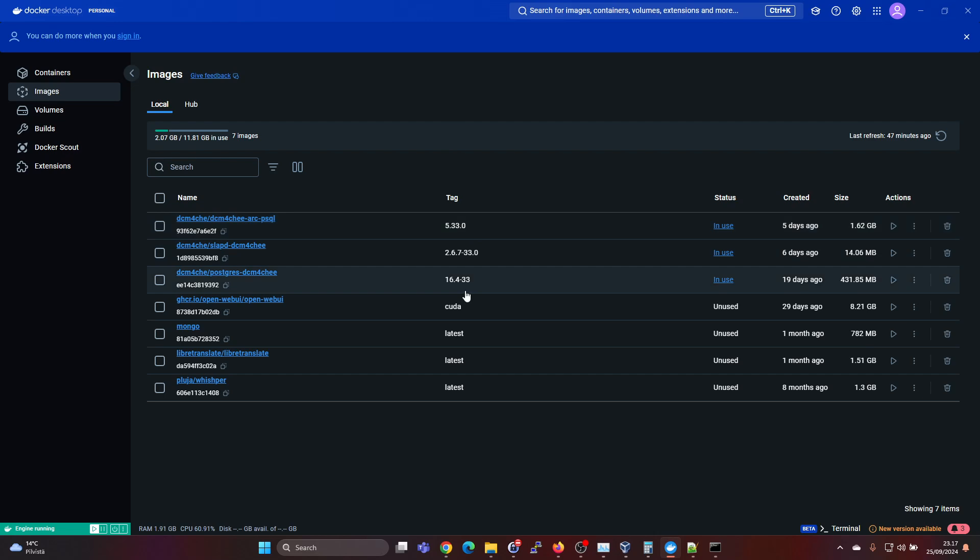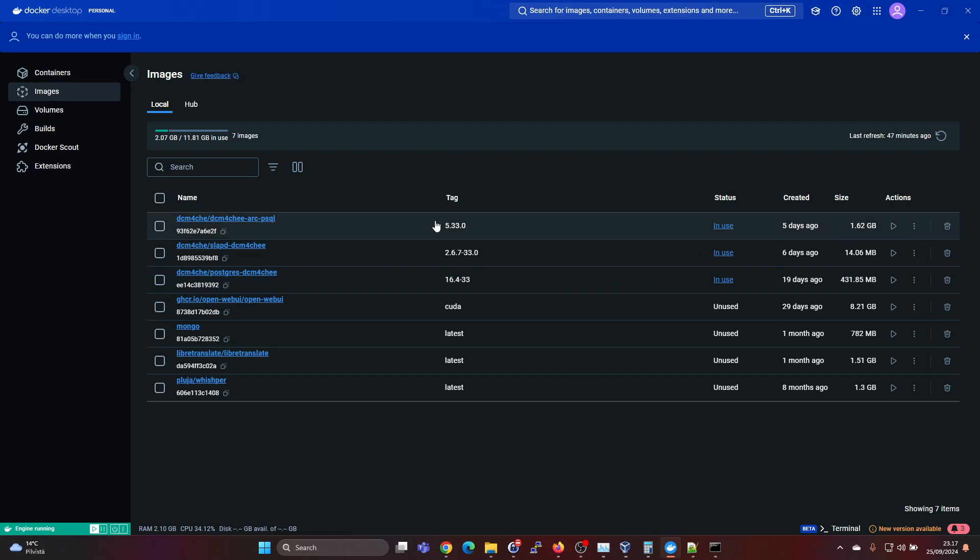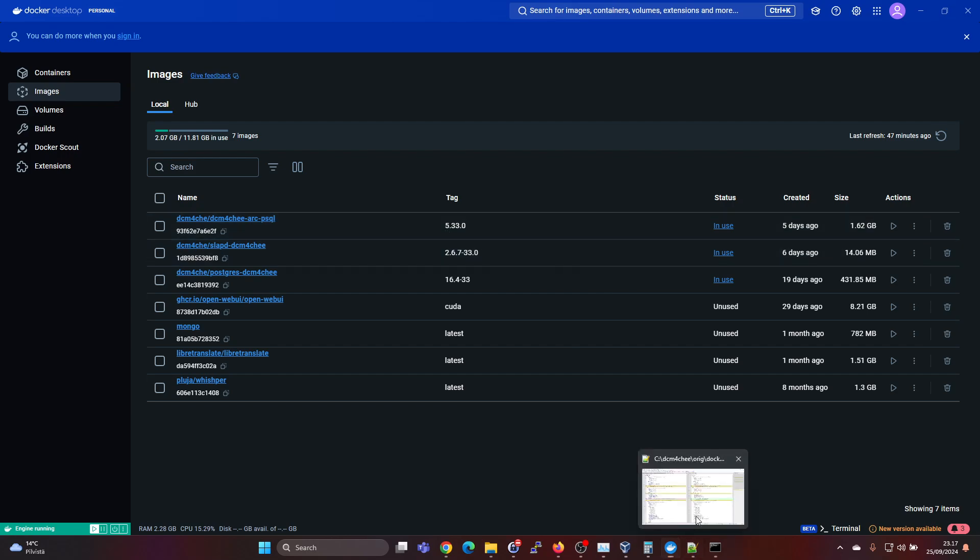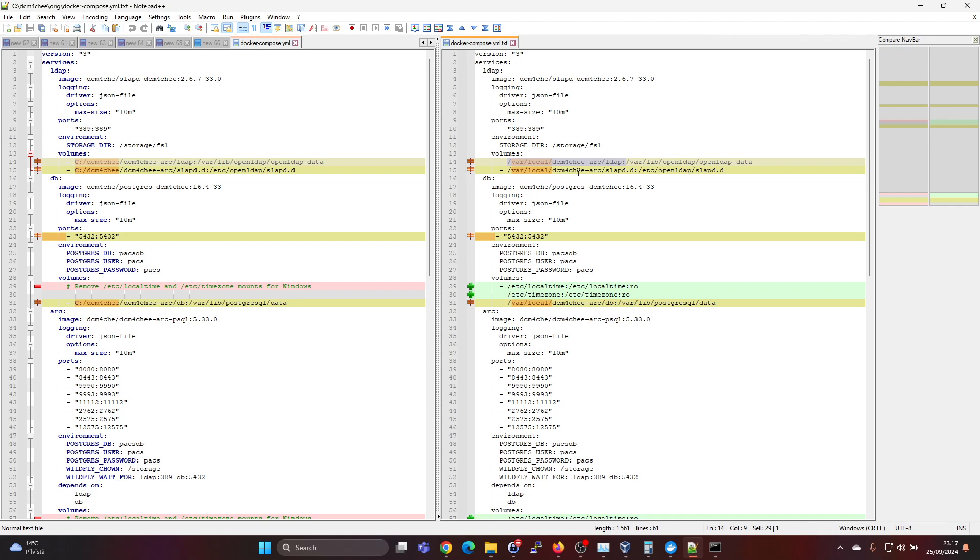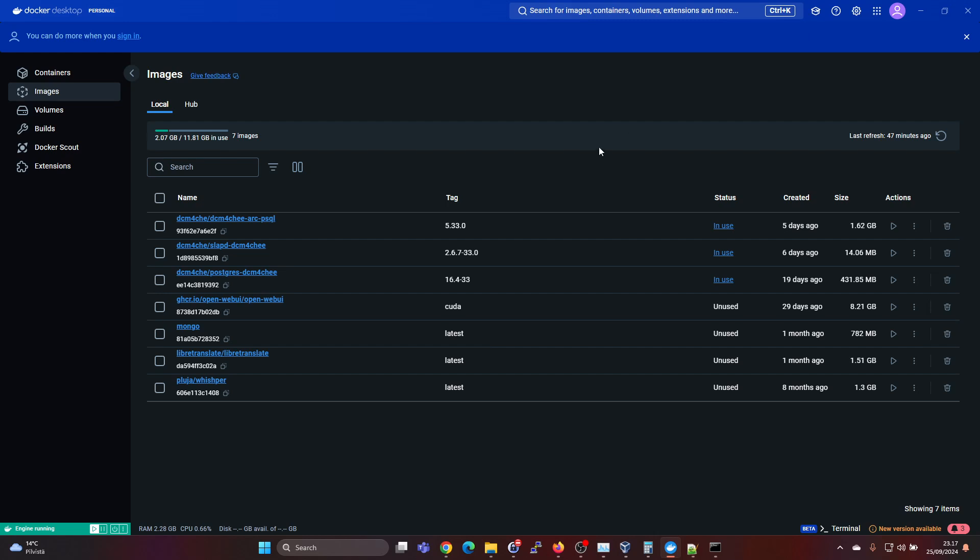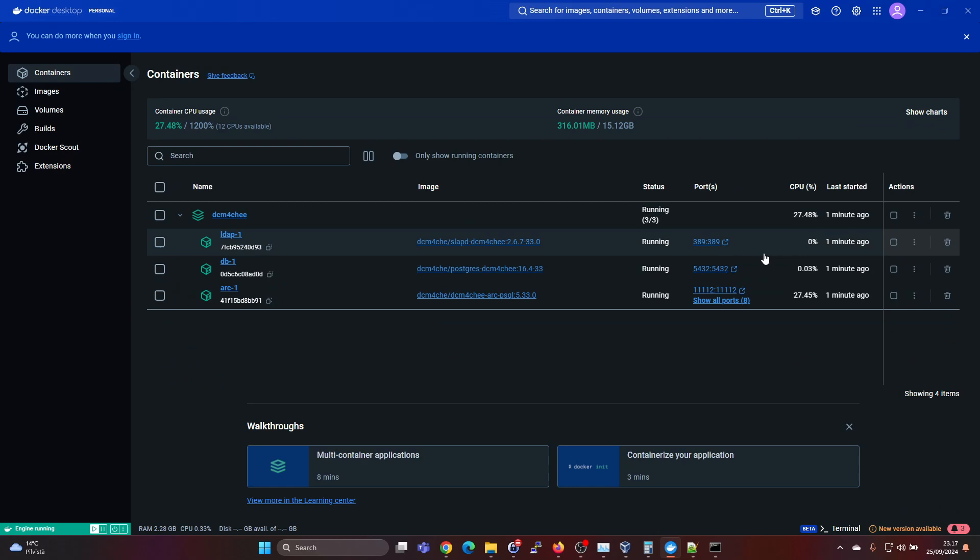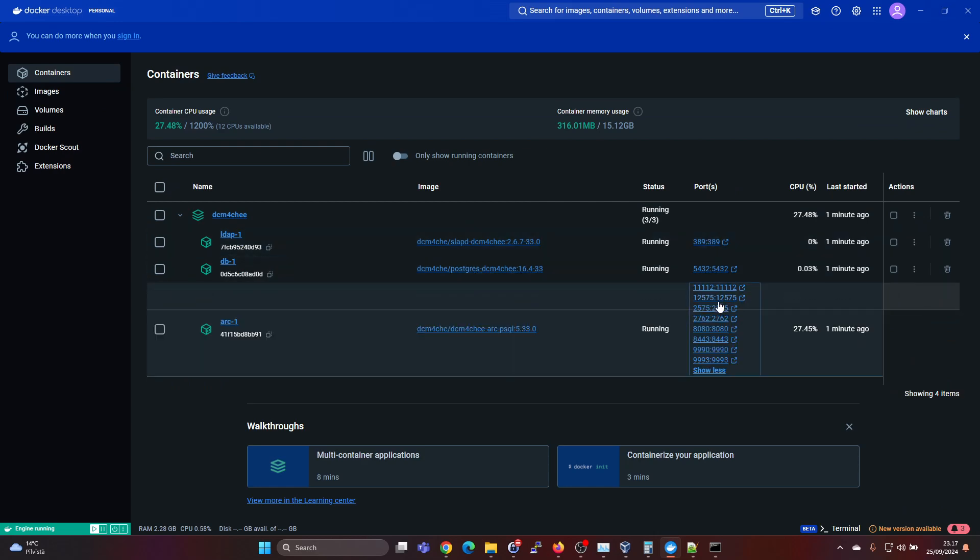So if you're following this video and have issues, then you can also install a tagged version with the YAML file. So then instead of getting the, well actually if you use the same YAML file I have, you can see here that it should specify the versions here. So then you wouldn't have issues in starting up. But anyhow, under containers, we can now see that all the three containers are running. You can see the exposed ports for them.